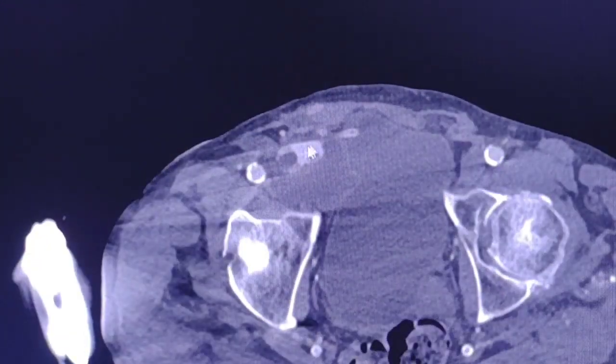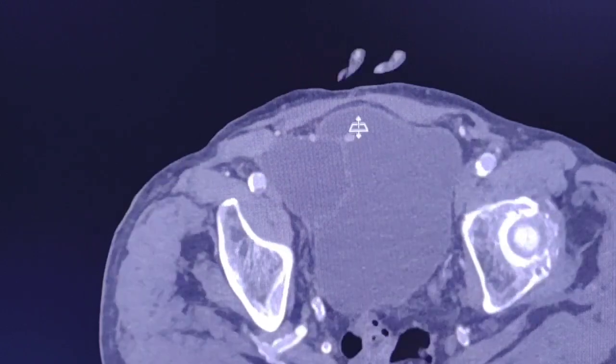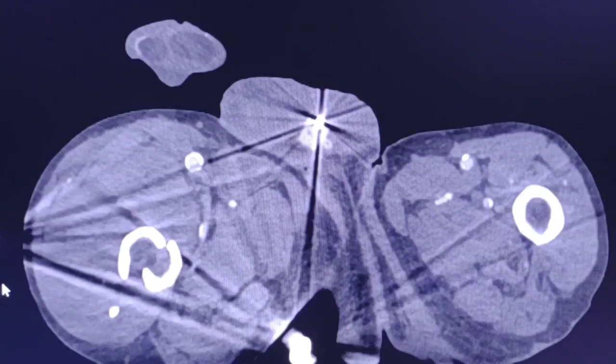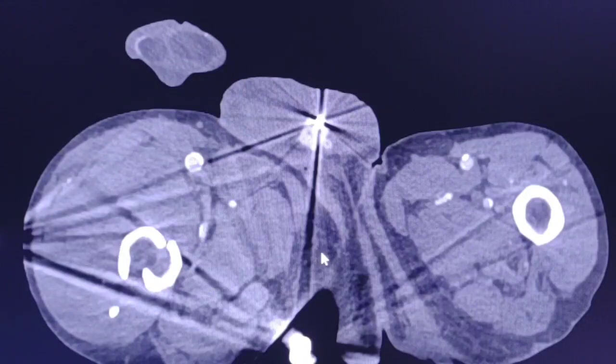What radiologists need to know is that there may be some complications that have happened.